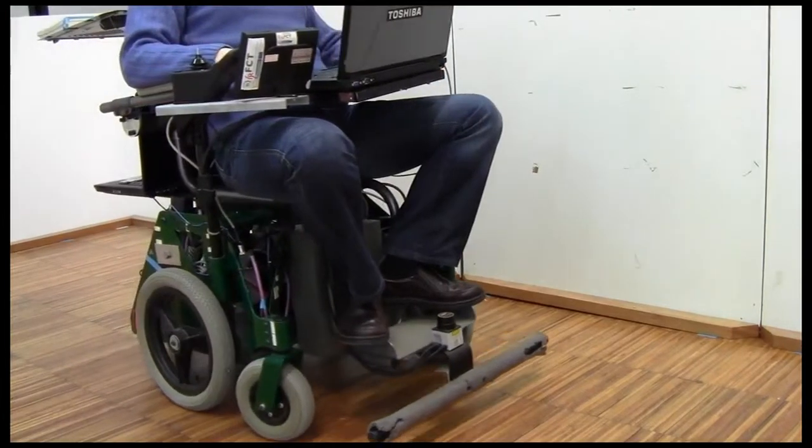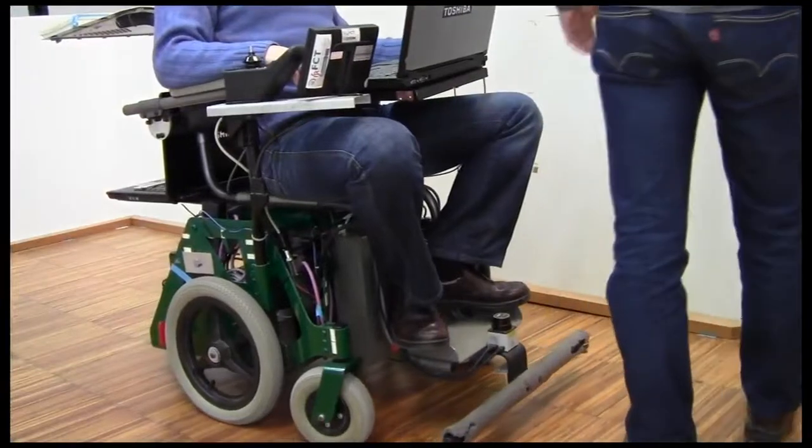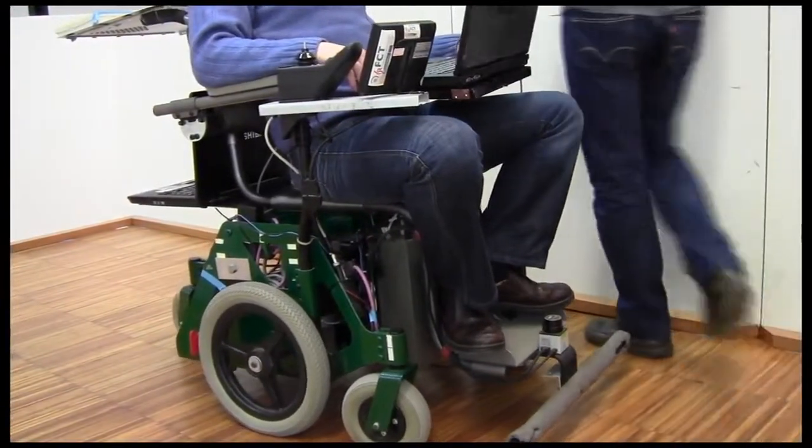When moving objects appear close to the wheelchair, it stops and waits till it is safe to follow the predefined path again.